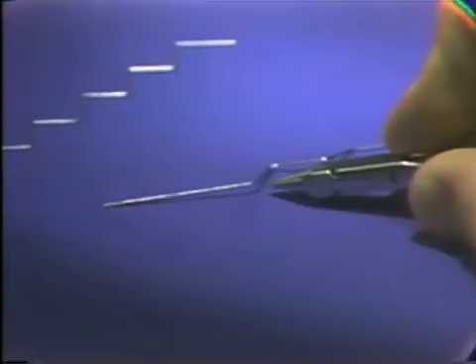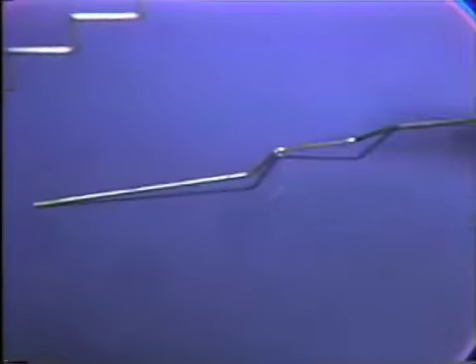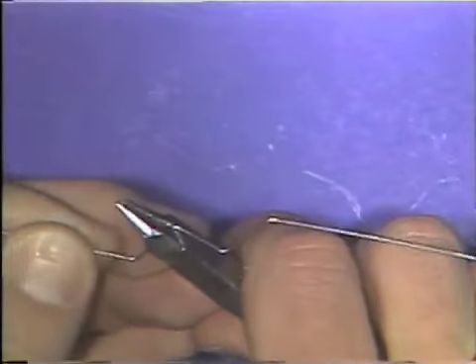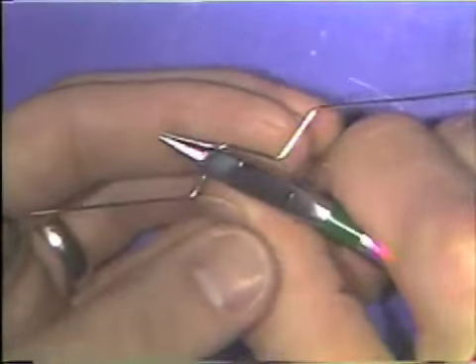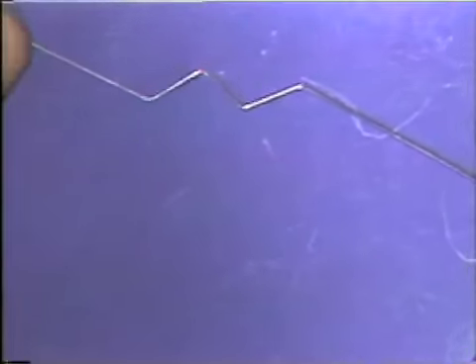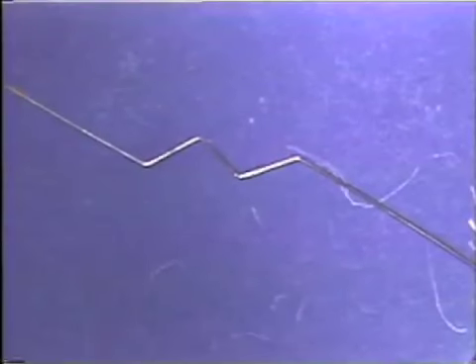You know that your wire was flat up until the point where you made the pencil mark. So to correct this, you simply go back and remove some of the bend that you just put in. You know that the bend you just put in the wire is the one that caused the problem. By removing some of that bend, again, the first portion of the wire becomes flat on the table.